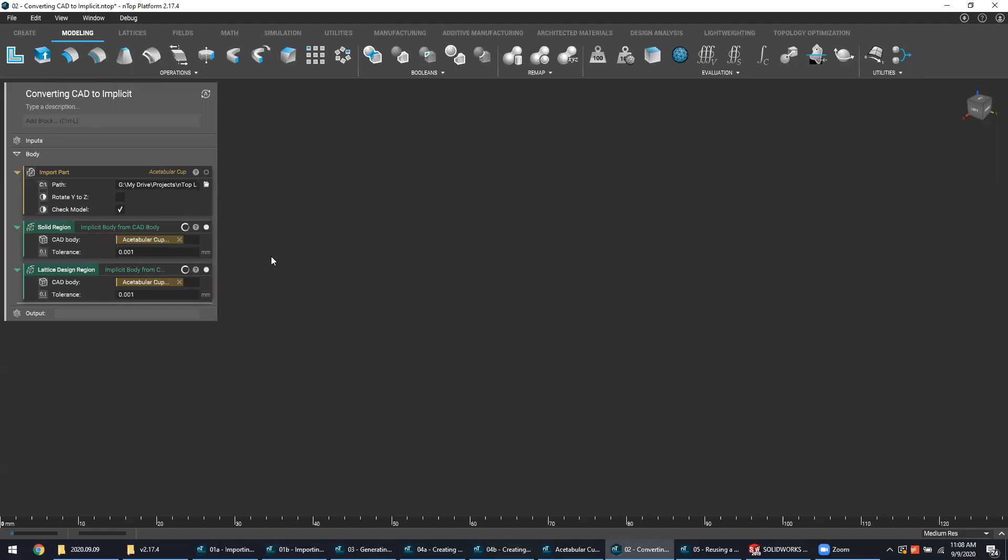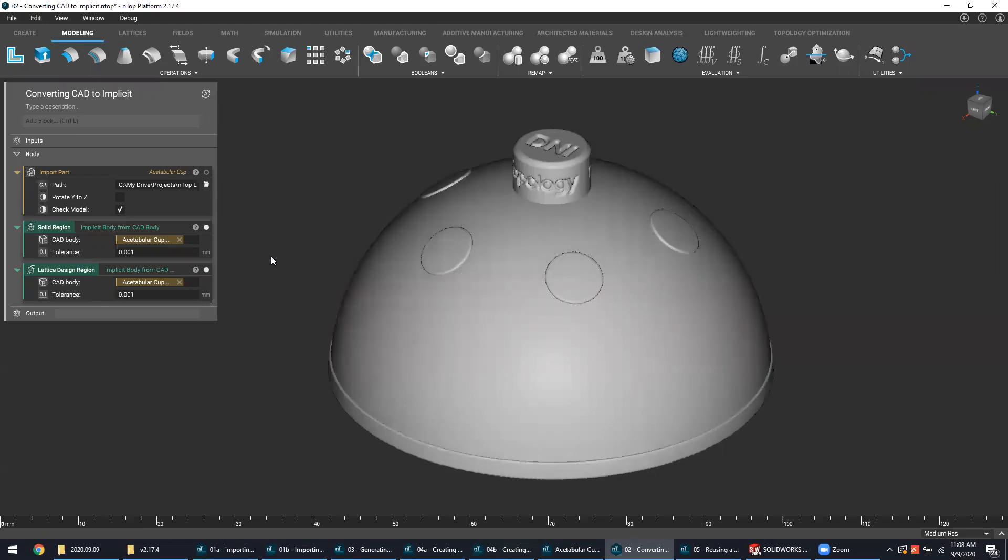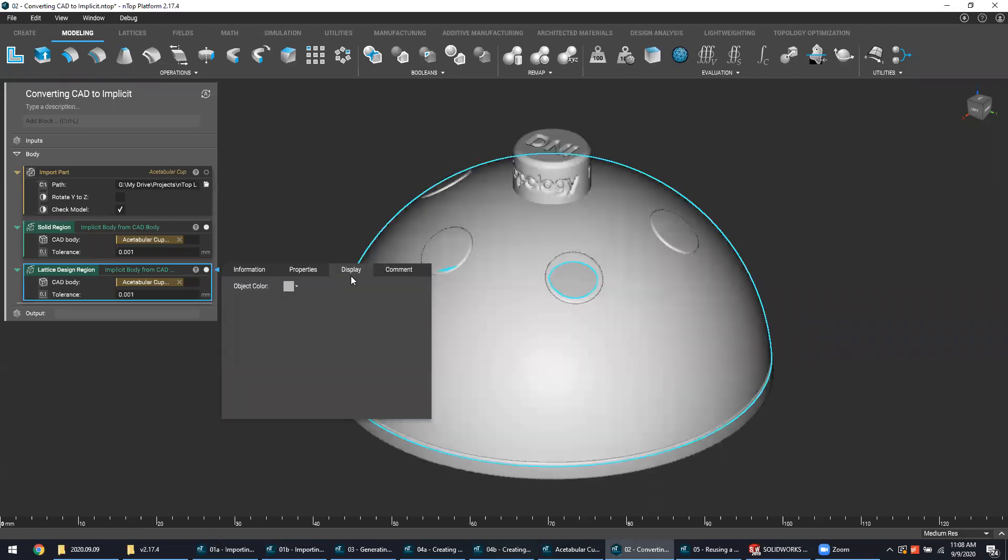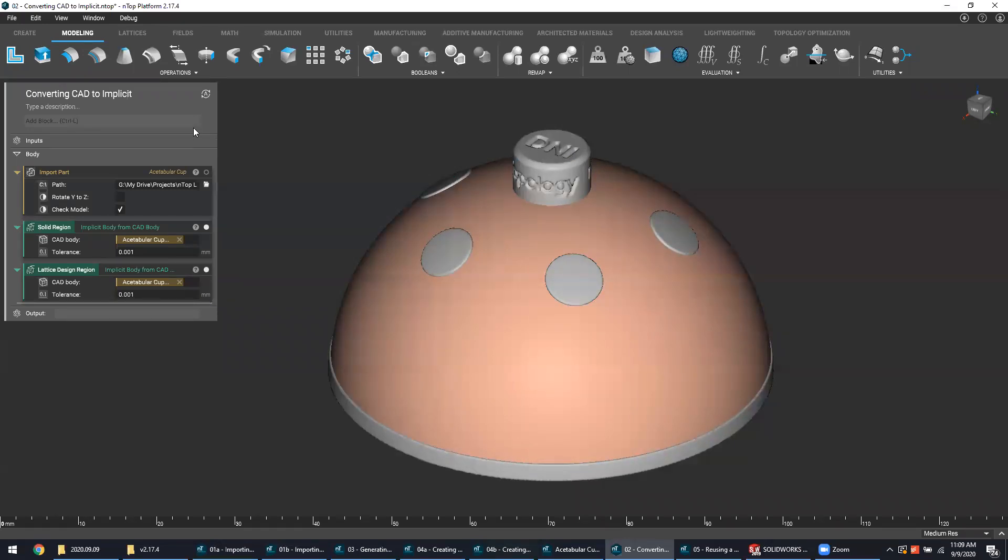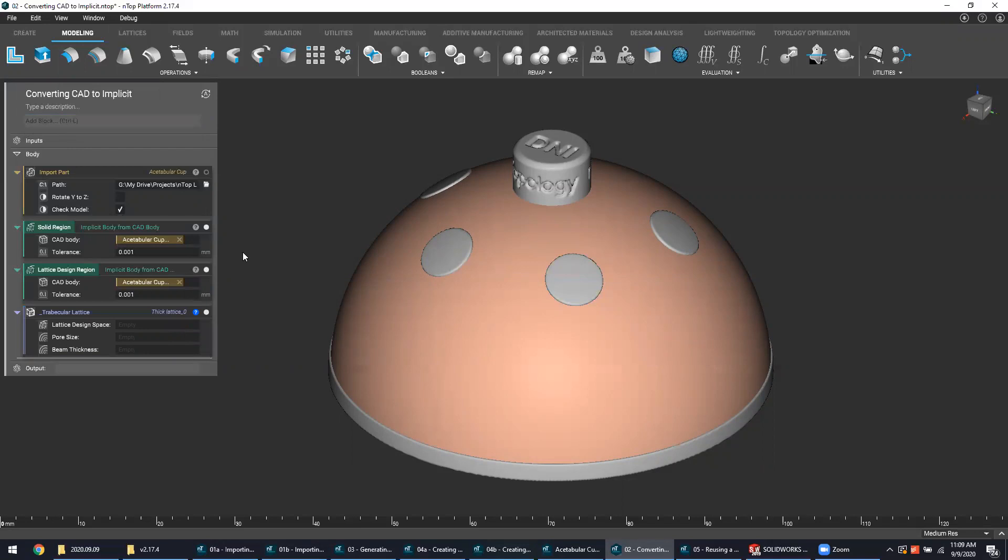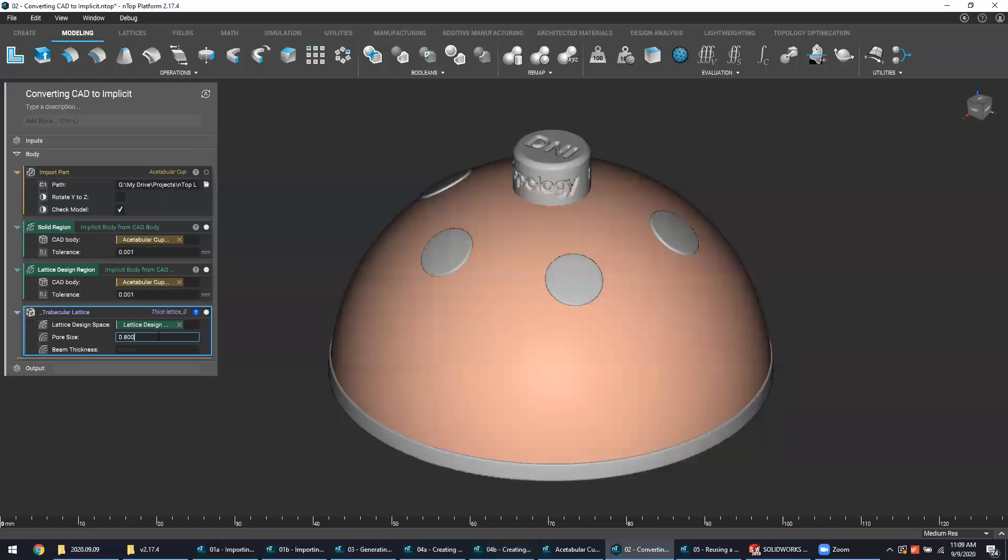Now normally this is the fun part. This is the step where you explore and design all the different ways that NTOP platform can create a lattice structure for osseointegration, and there are so many unique ways to tailor and characterize that structure to meet your specific application and design criteria. For the sake of brevity, I'm going to pull out a design workflow that I already have created. I can search for this trabecular lattice workflow that's already been done, and this design workflow is a customized workflow that I have already put together and packaged into this single convenient block. All I have to do is populate the inputs with the correct values, the preferred values that I think will create the best structure for what I'm trying to create.